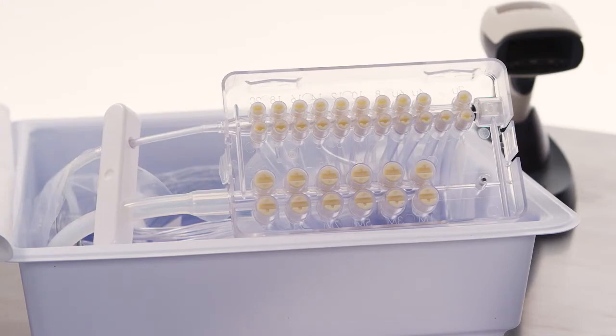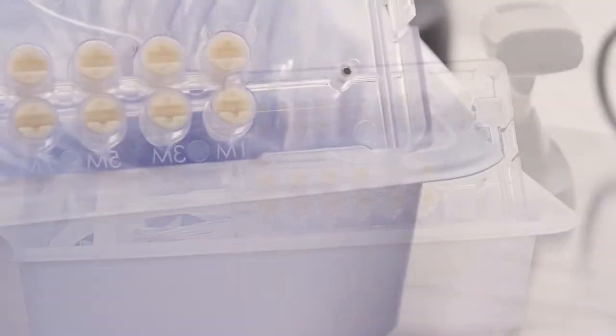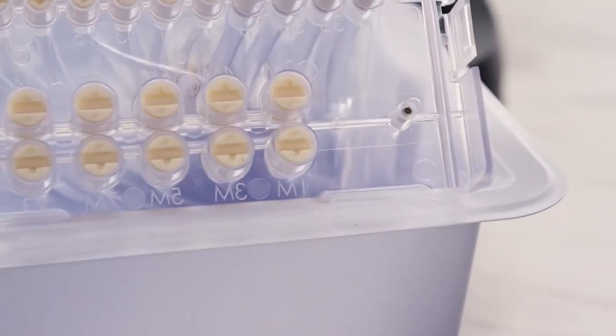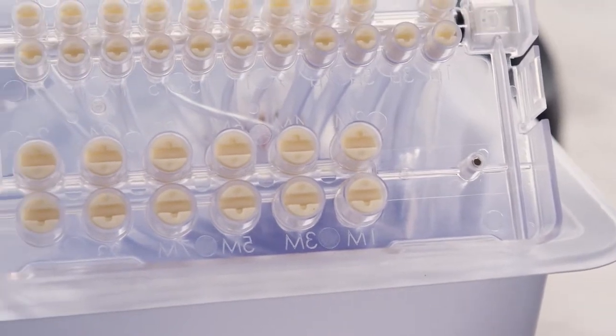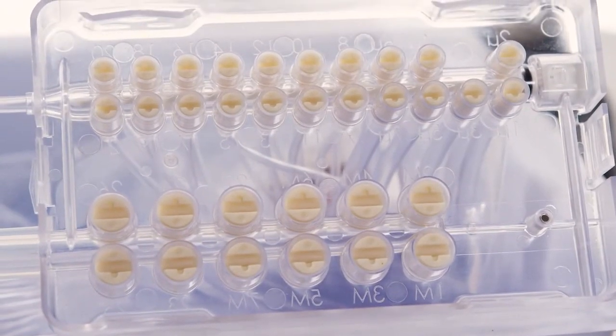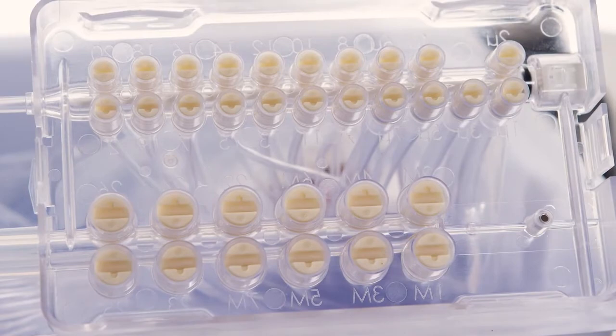Inspect the macro and micro valves to ensure the slots in the valves form a straight line. When these slots are in a straight line, the valves are in the correct orientation and the transfer set is appropriate to use.